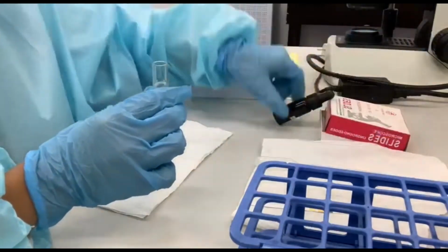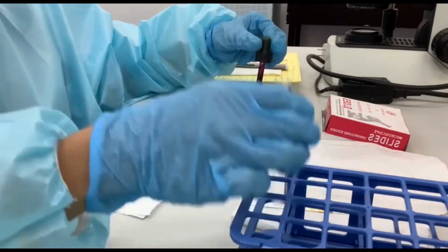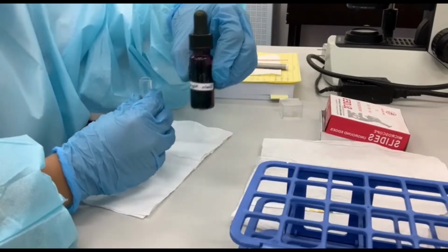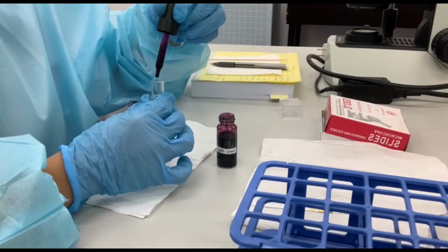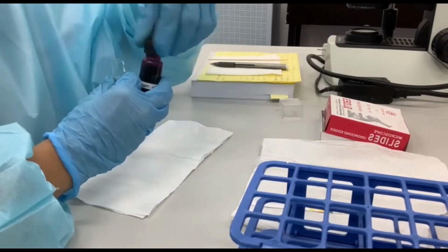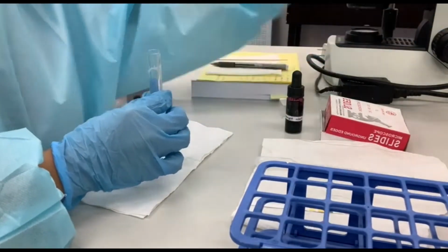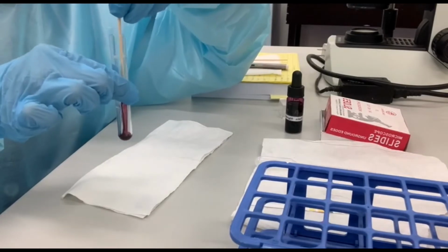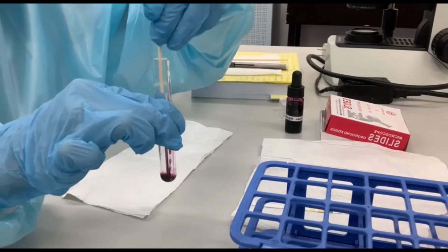In eosin staining procedure, the nigrosin increases the contrast between the background and the sperm heads, making the sperm easier to visualize, while the eosin stains only the dead sperm, turning them into a dark pink, whereas live sperm appears white. The staining technique must be performed immediately after motility is assessed using sperm from the same semen sample.